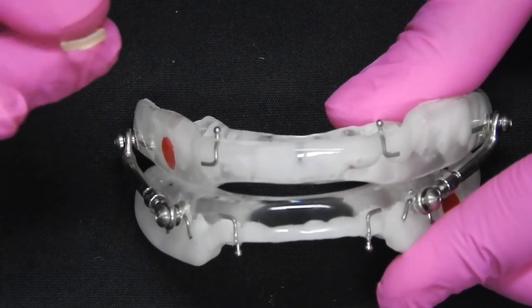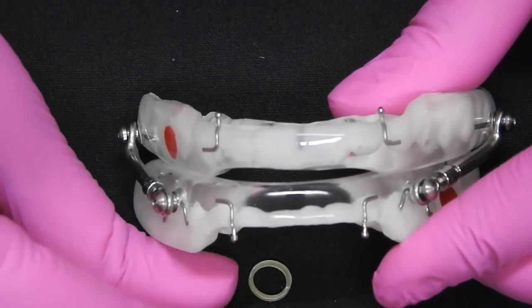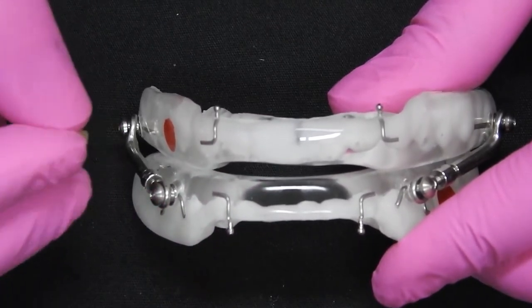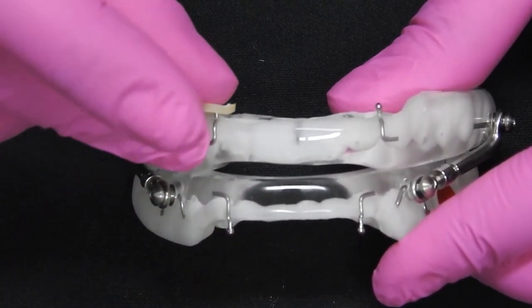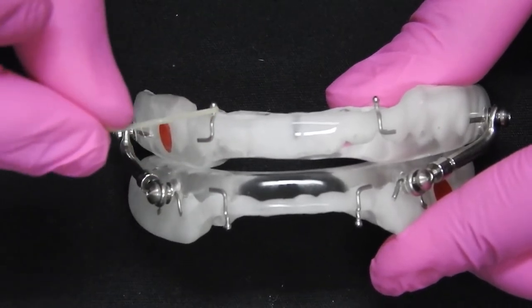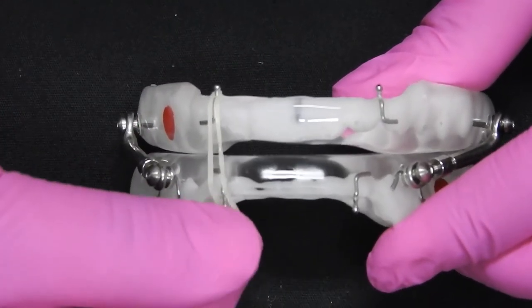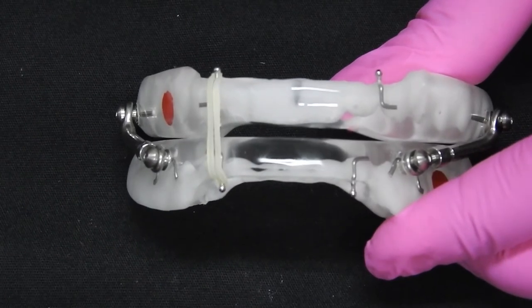Take the elastic that's been provided to you by your doctor and hook it from the top arch to the bottom arch on both sides.